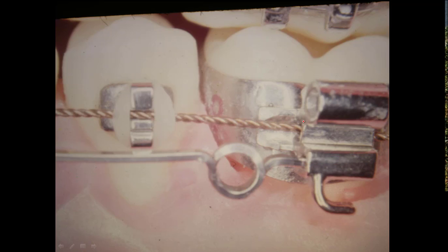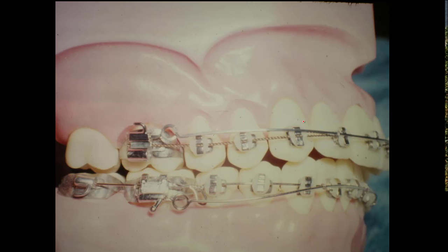Now let me go to the next picture. This is not the regular wire, but here is a round wire that's in the mouth and it is tied back — tied to the molar. So you can squeeze these teeth together, and as you torque them, they can't dump out hardly any. Often times you don't have to worry about coming in and putting reverse torque in these four anterior teeth. Tie the arch wire back.